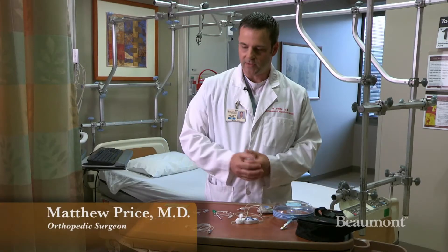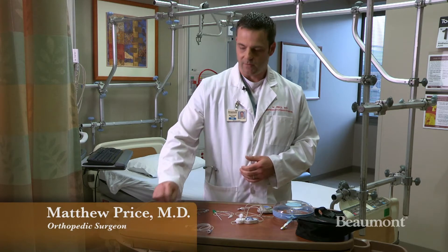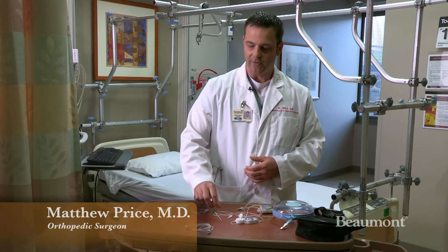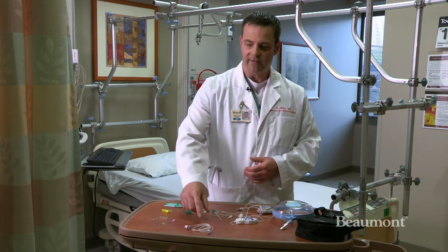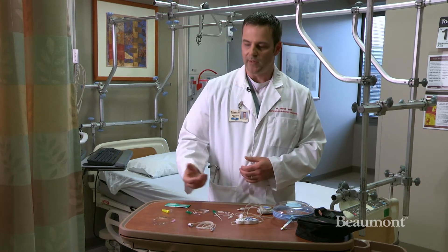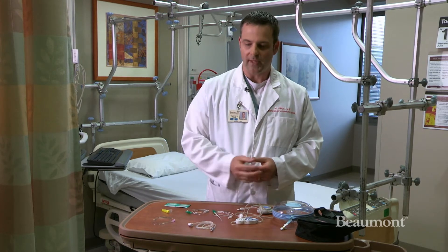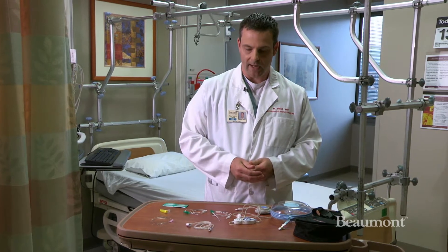These are the components of a pain pump. We have the catheter, we have the different needles that we use to place them, and we have different tubing parts that we use to inject the local anesthetic during the block.